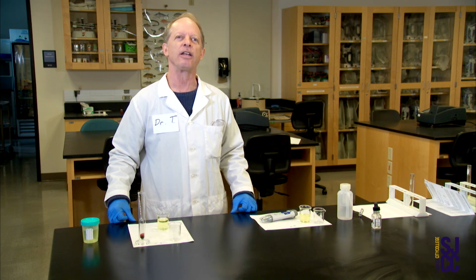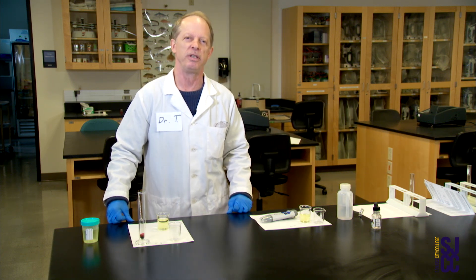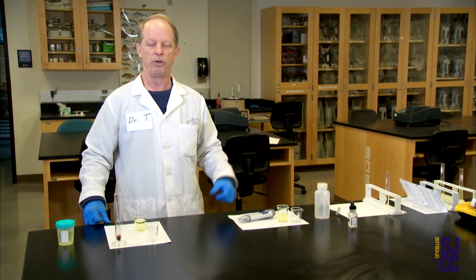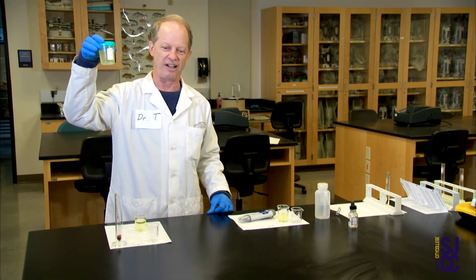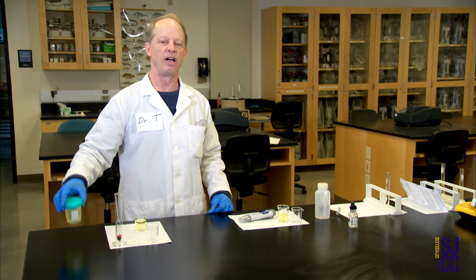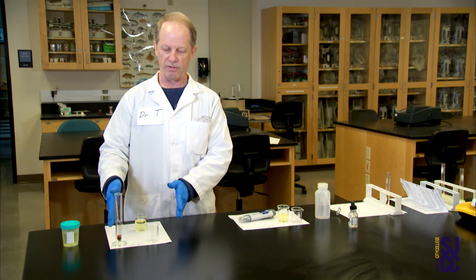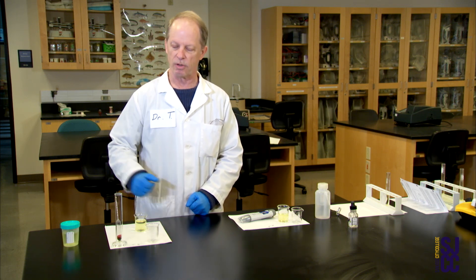More specifically a clinical urinalysis. This represents the sort of tests that would be done in a clinical lab or your doctor's office when they do a routine urinalysis and you end up peeing into a cup. I'll go through them in order starting with specific gravity and then pH, the same order as in your lab handout.